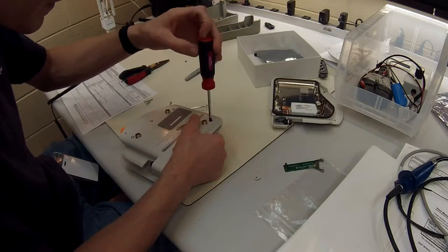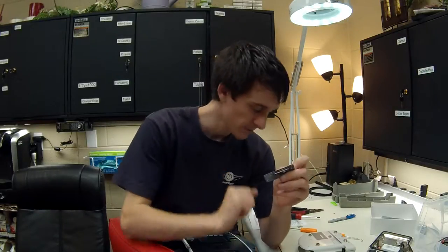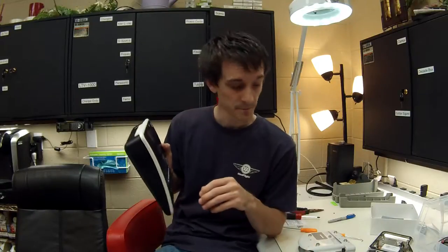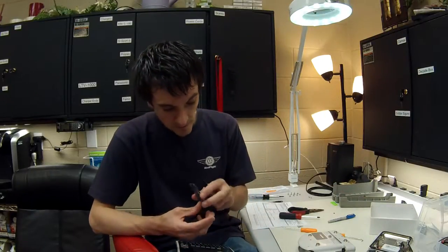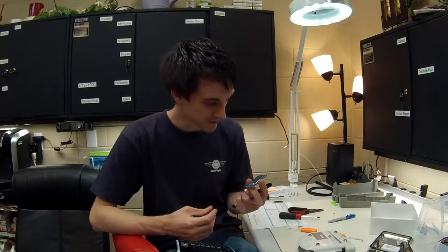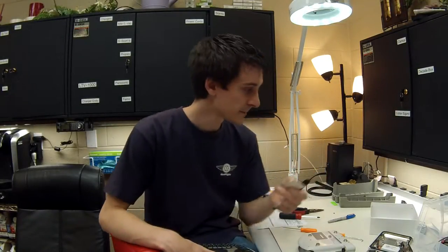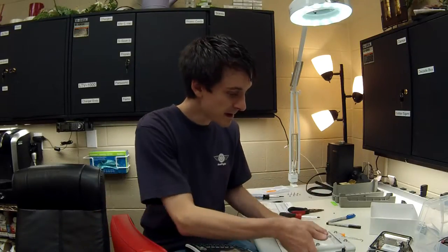One other thing, they also provide a brand new serial label piece on the back, but they don't provide the serial number for the old unit. So what I like to do is I like to actually create a label. I use, I think, six point font on my label maker and I'll actually stick it on the back of here and then stick it on there, because they actually give you a marker to write on it, but it's going to be very difficult to do that. So it looks a little bit more professional if you use one of your label makers. So I recommend using the label maker. Trust me, I tried it the hard way.